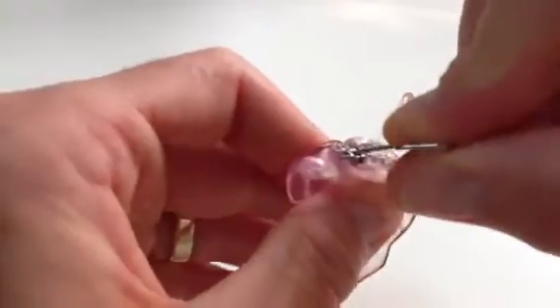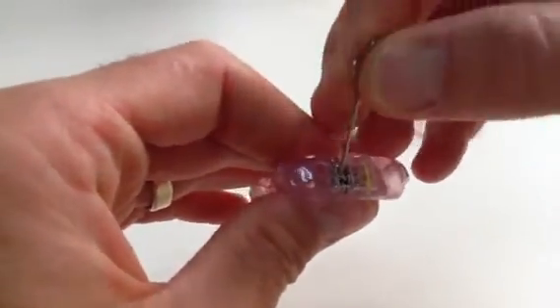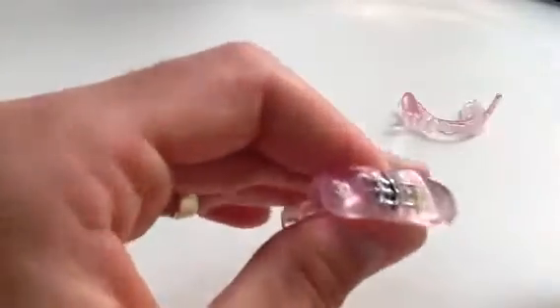In order to move forward, go one, two, three, four, five — completing five turns on the second side as well.